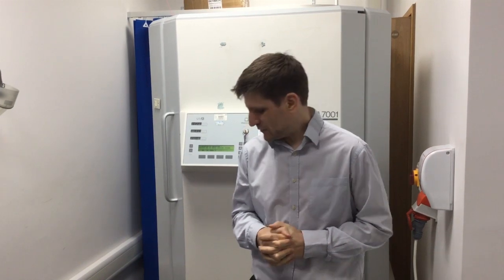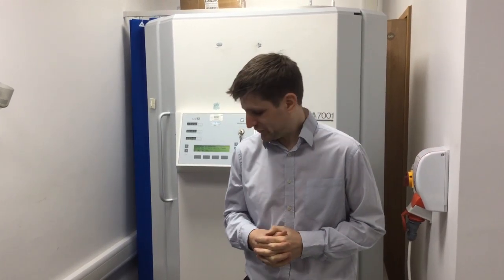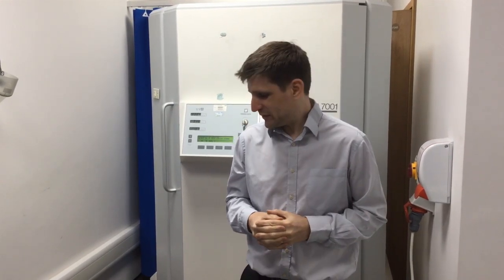Once we've finished collecting all of our irradiance measurements from the indirect method, we have to think about how we're actually going to apply them. We need to consider the direct-to-indirect ratio: at some point we need a way of determining what factor to apply to make our indirect measurements relevant to a patient being in the cabin. This could be via the direct measurement method or potentially using a phantom, though most people don't have a phantom, so it has to be decided locally according to your risk assessment how you'll establish that ratio between direct and indirect methods.